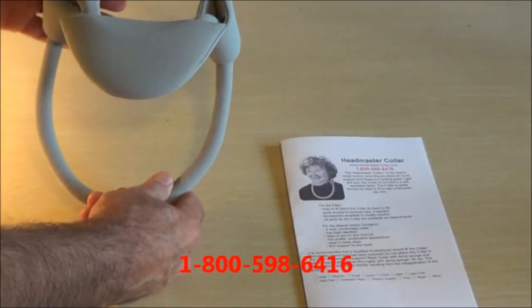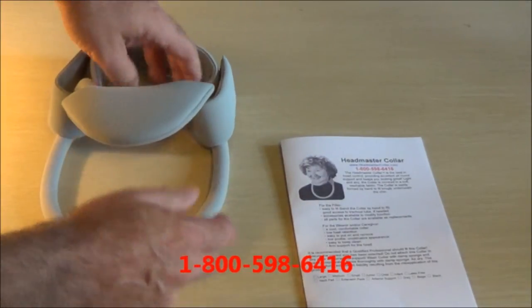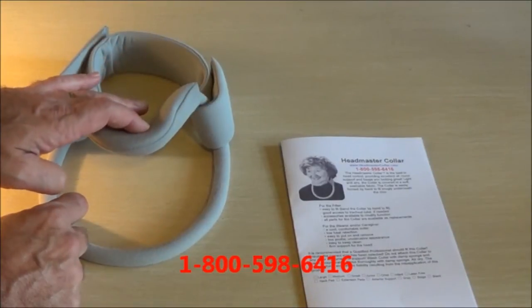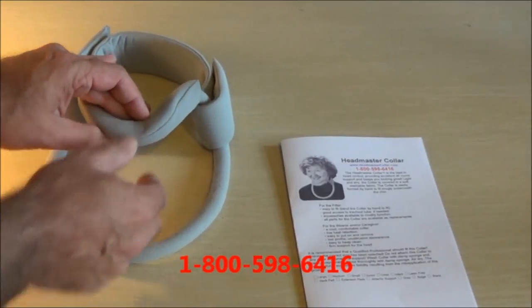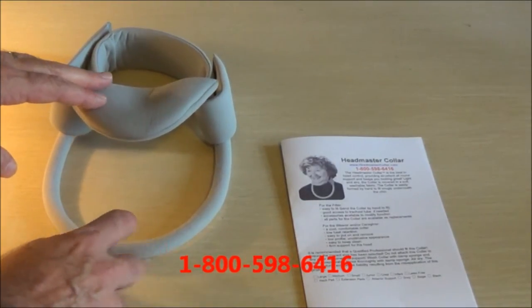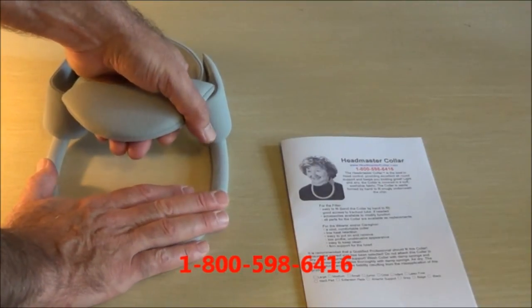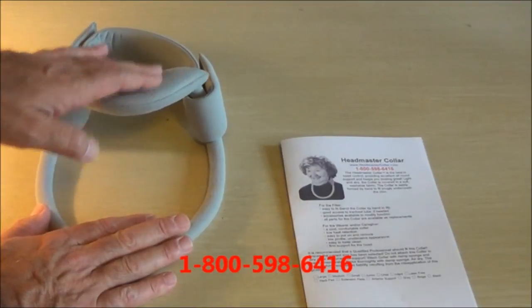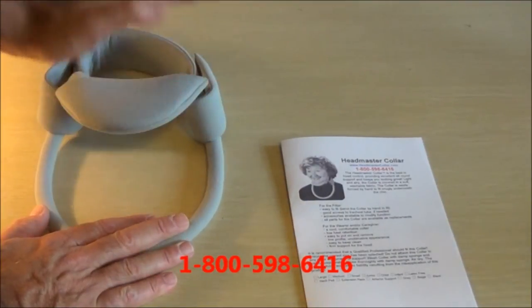As you can see, the neck goes in here. This is the chin piece where the chin lays, so it's nice and comfortable with support. And this is the chest piece. This is also adjustable, so I can pull this up and adjust it to hold the head a little bit higher.